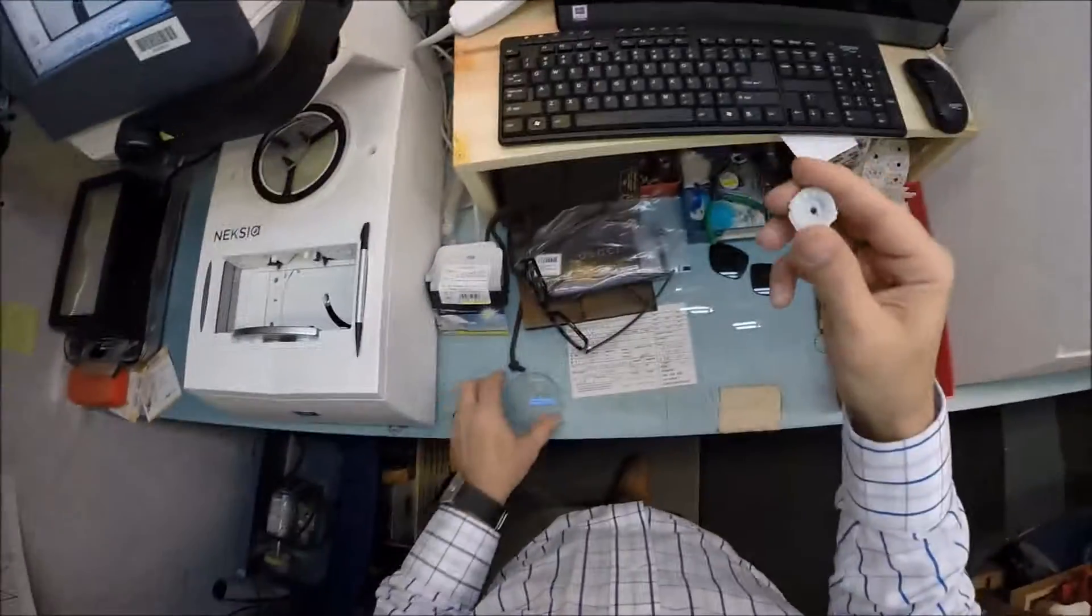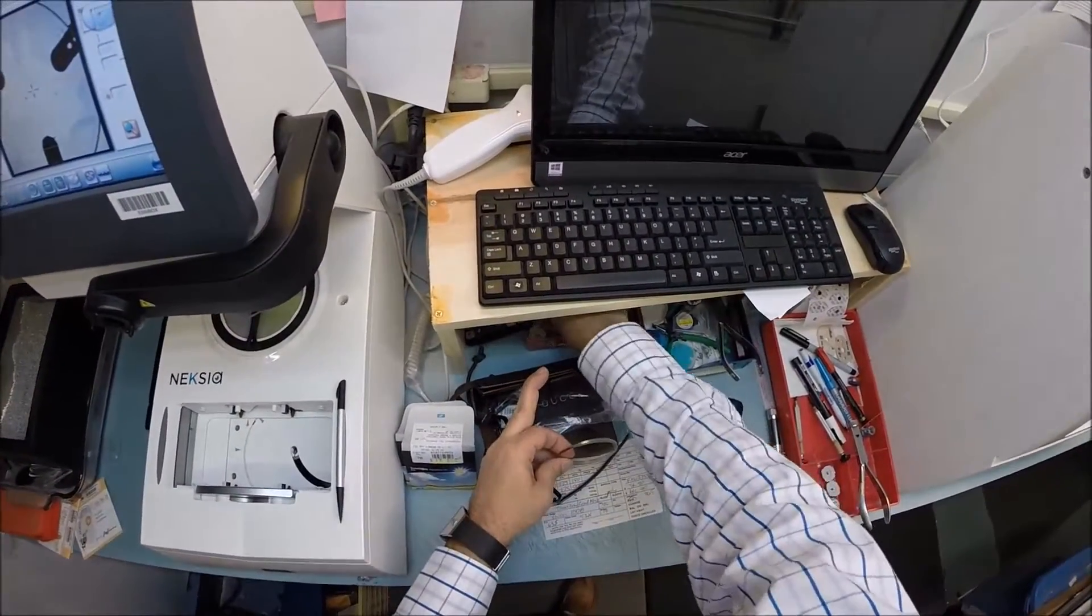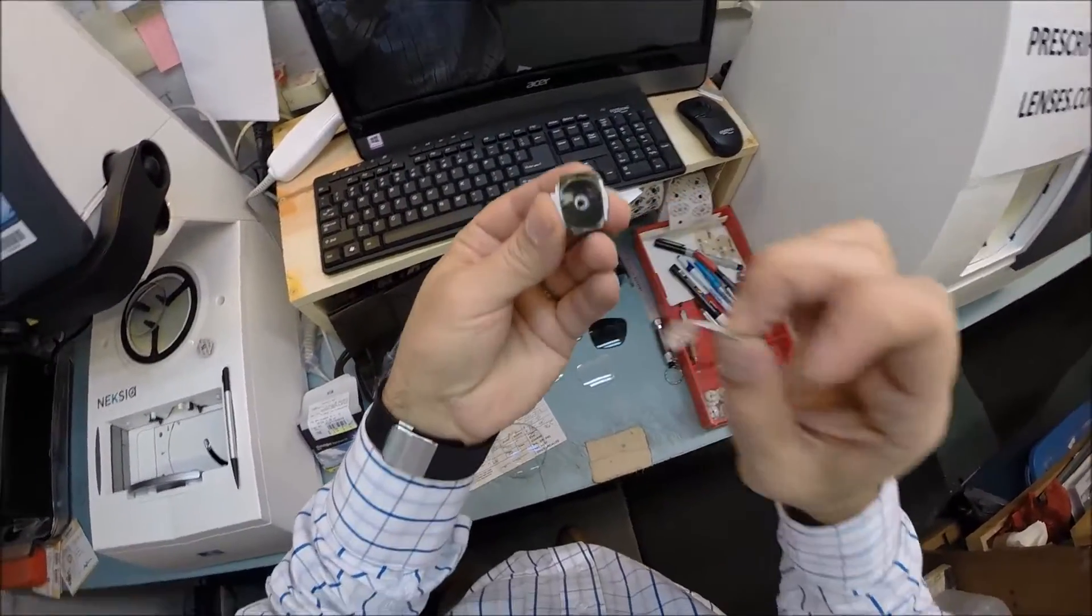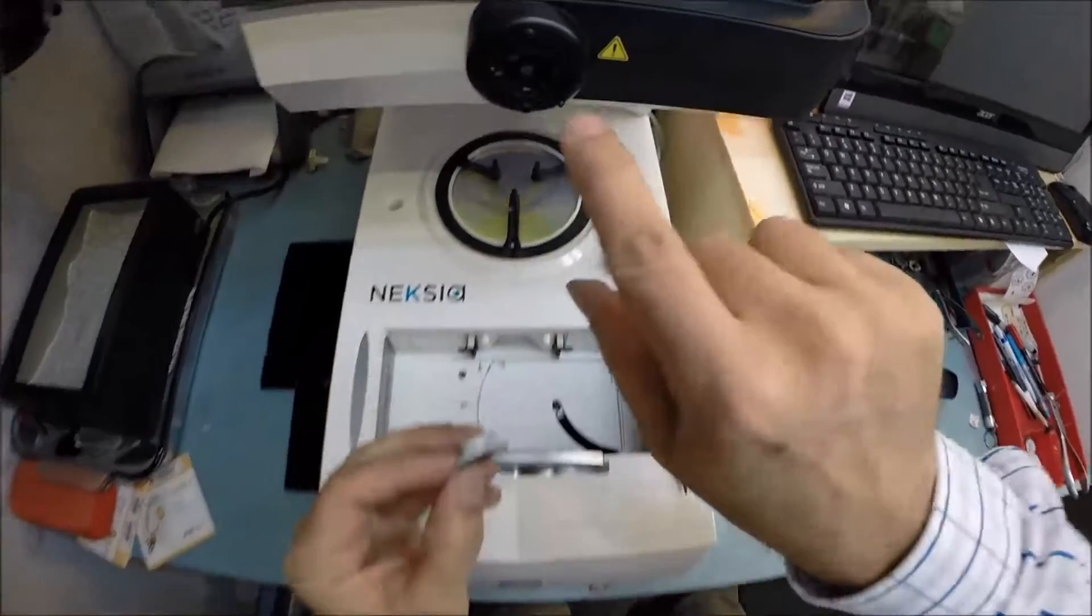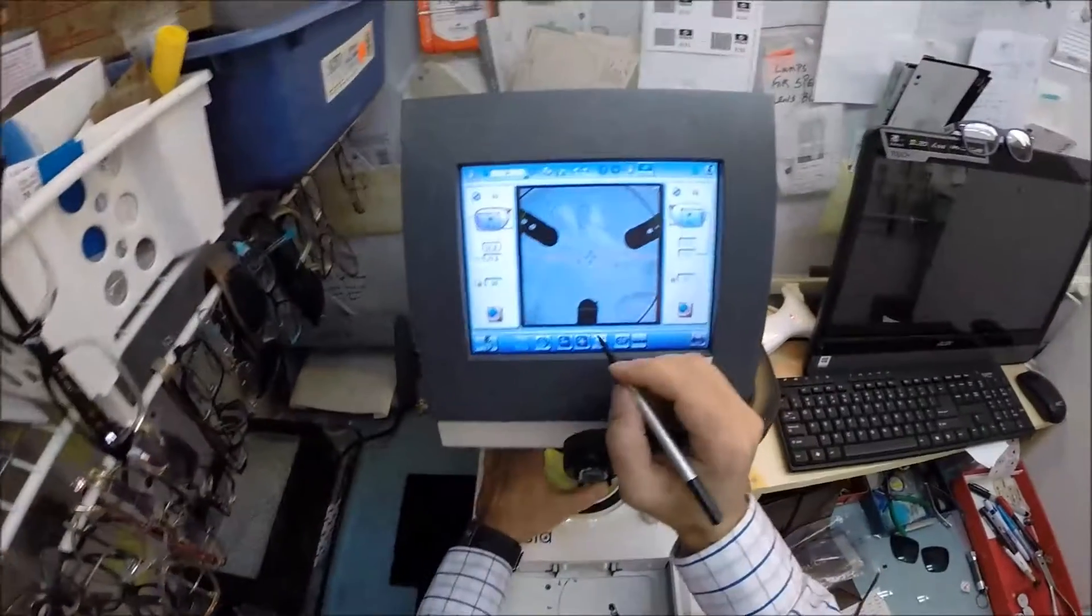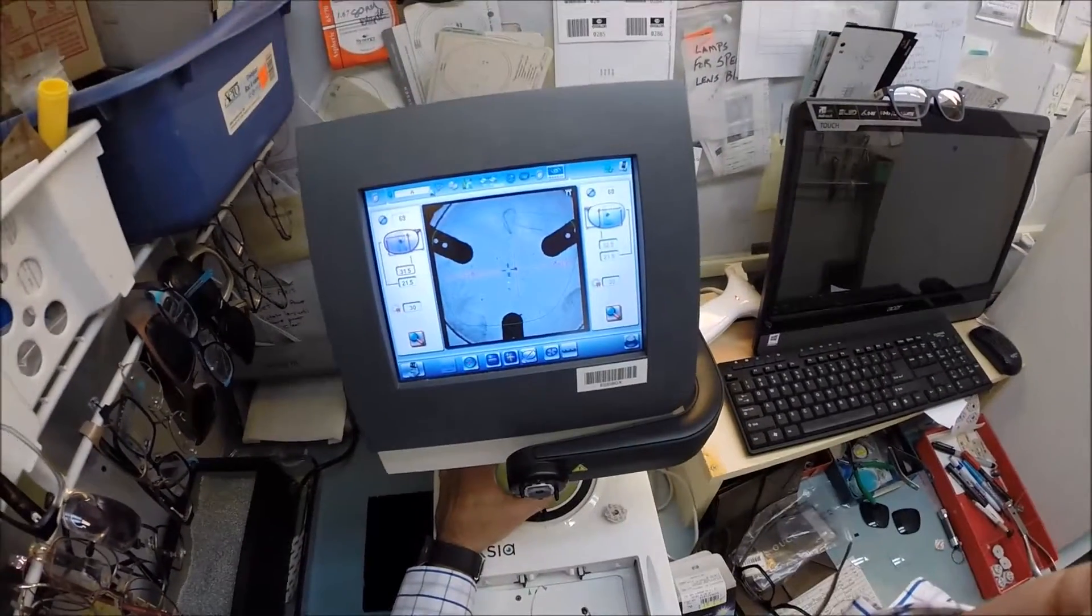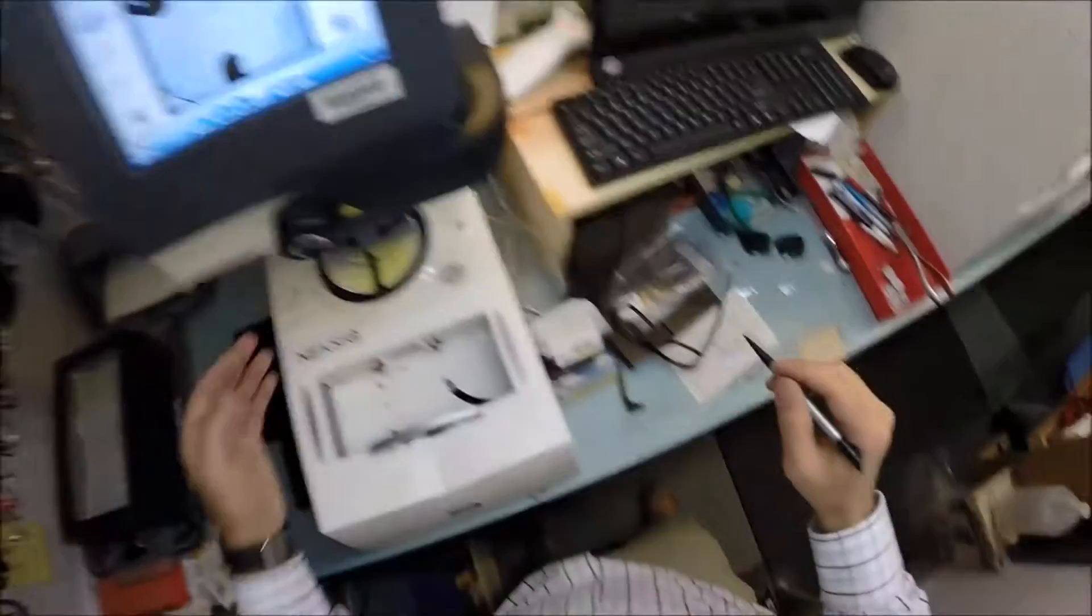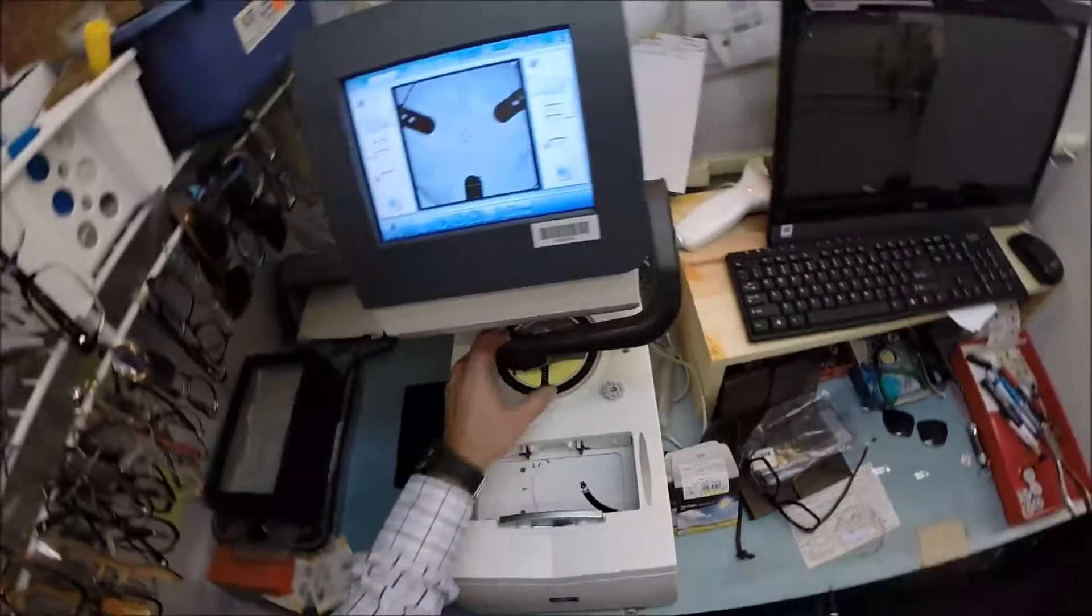This is a block. I need to attach this to the front of your lens. This is what's going to hold it in place in the lathe essentially. So I need to put a double-sided adhesive sticker on there, of which I've already done. I'm going to pull away the tape to expose the second side of the sticky label. That black side is the sticky side. This little silver button in the back is a magnet. It does two things. It's going to hold it in place with this magnet there and also the magnet inside of there. So let's go ahead and get those three dots lined up just perfectly. That is your optical center. The blue cross is the geometric center of the frame and the other two dots I'm going to have on that orange line that puts me on the exact meridian that I need to be. I hit that button. The arm drops down and places the block onto the lens for me.